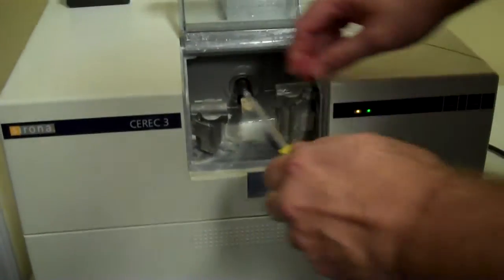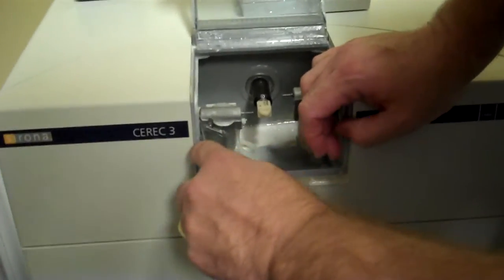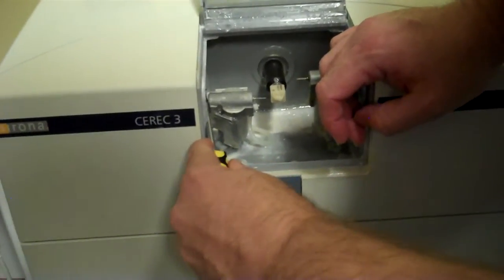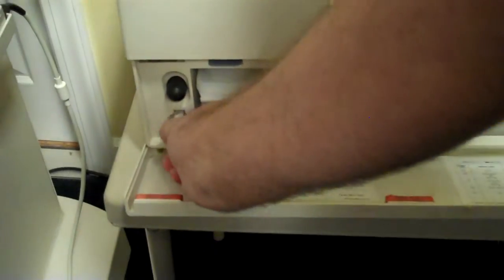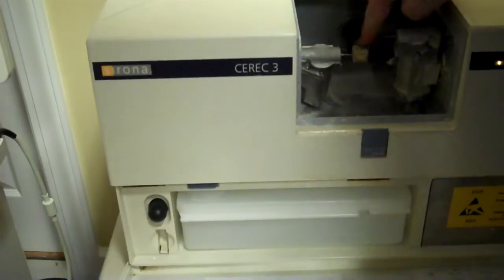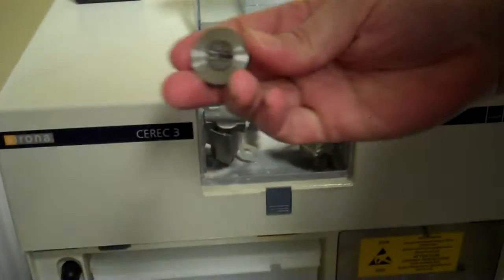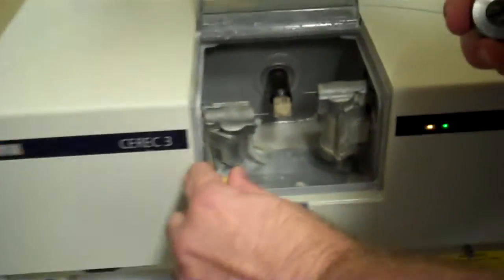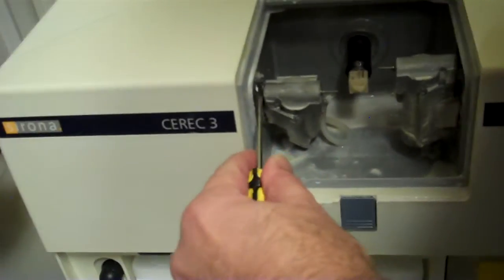And you firmly but mildly put it on the back side of that button. I'll record down here too Jenna. The little burr changing tool is right here in the bottom, and there's your screwdriver to change the burr block, but this is what you use to change the burr with. So you put your screwdriver on the back side of that, almost right in the dead middle.